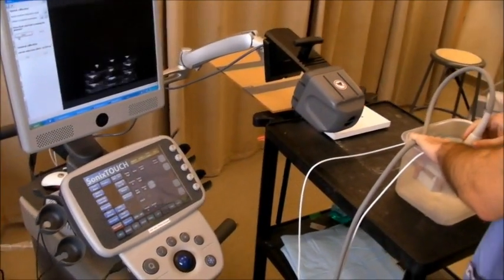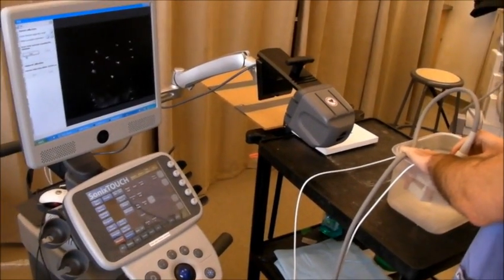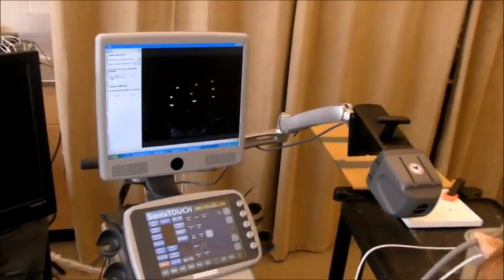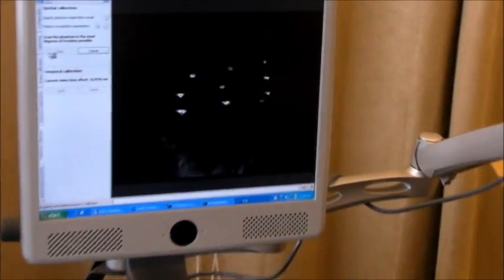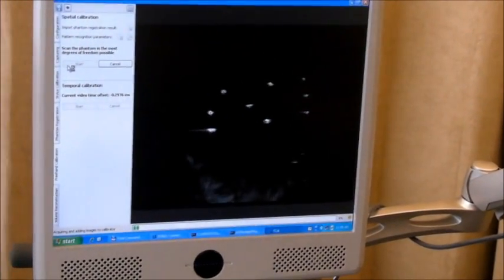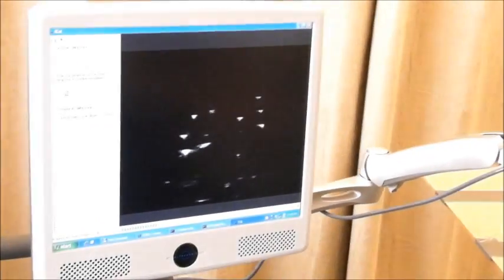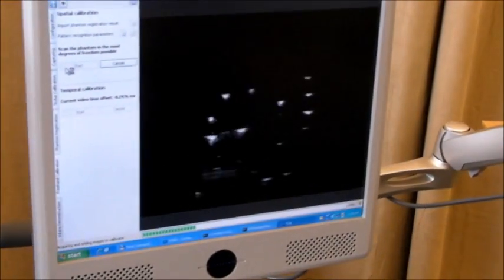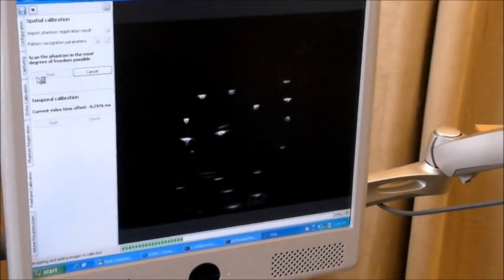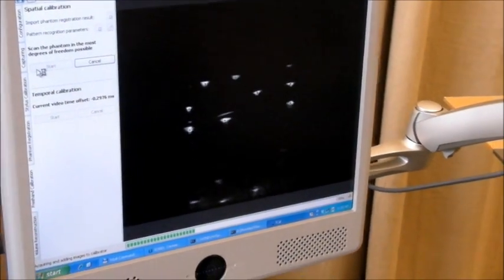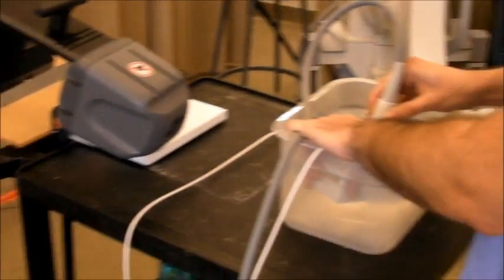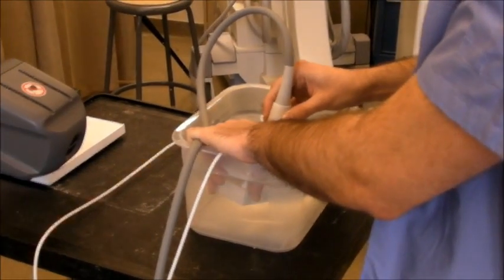I dip it into water, find a good position. First scan, you can see the green dots in the image. It means that the segmentation is successful on that particular image, and you can see the progress bar movement.